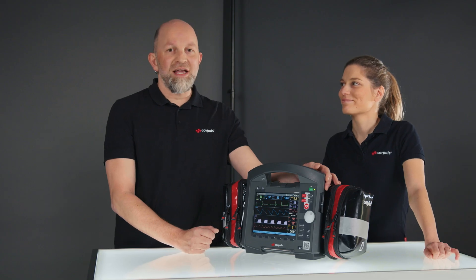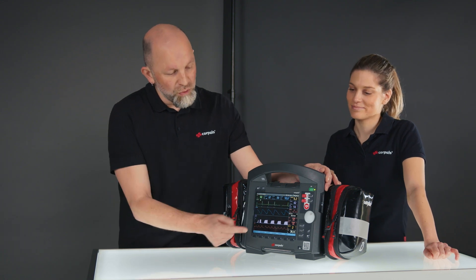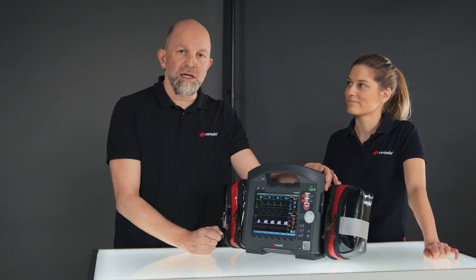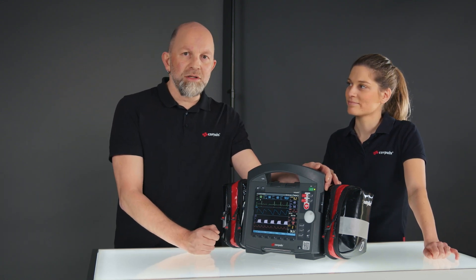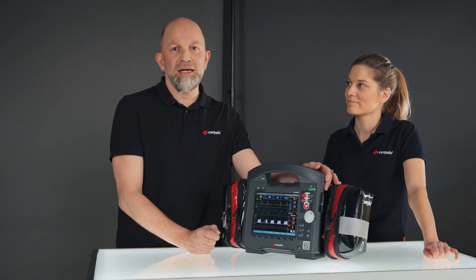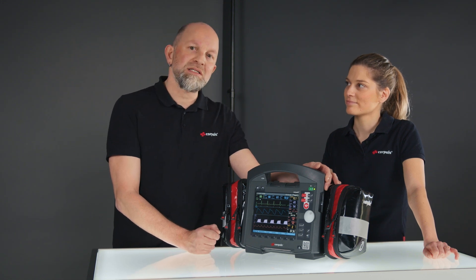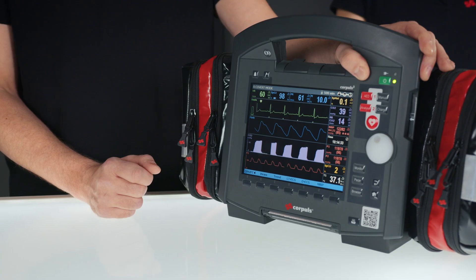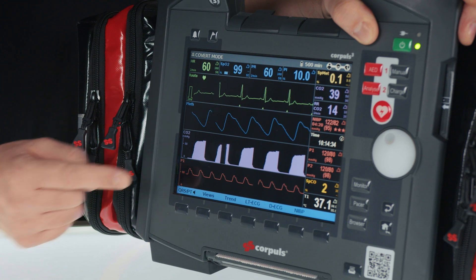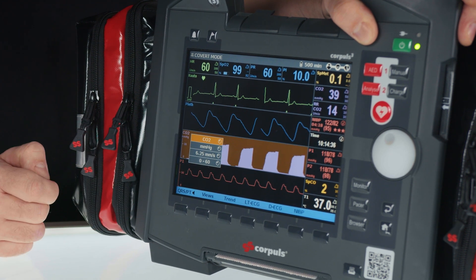The measured values can be displayed numerically and as a curve. In the respective context menu, the units MMHG and KPA can be changed. In the curve context menu, the display area can also be changed.